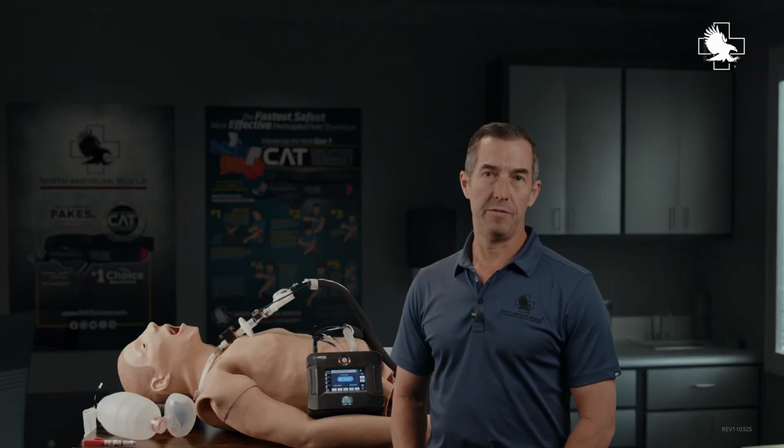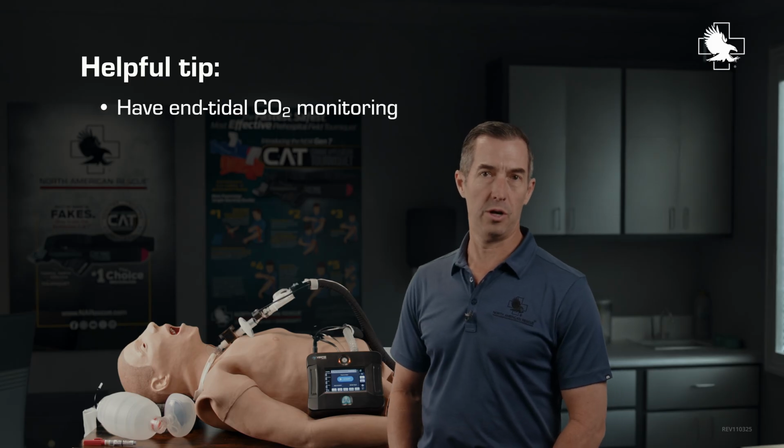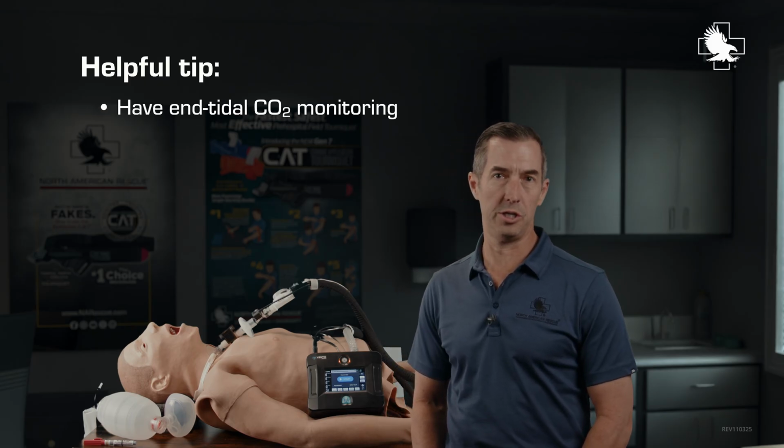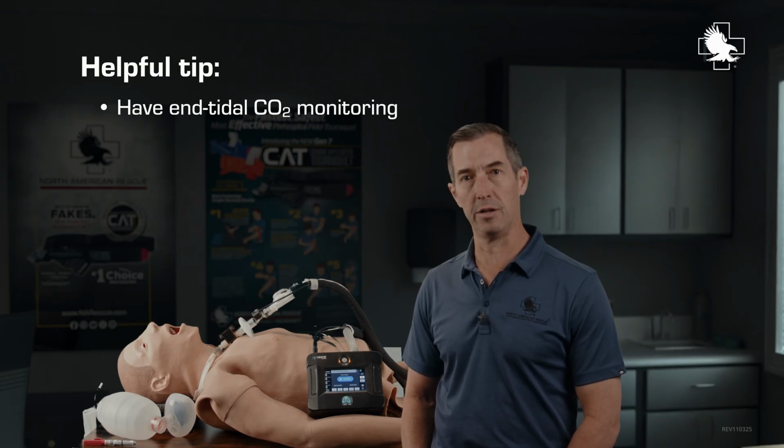Finally, in troubleshooting a ventilator, it's really helpful to have end-tidal CO2 monitoring. Based on the waveform and the pattern that's occurring, you can tell a lot about what's going on with your patient. So I really encourage you to educate yourself on end-tidal CO2 monitoring if you're going to be ventilating patients.